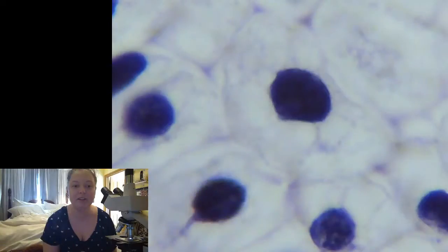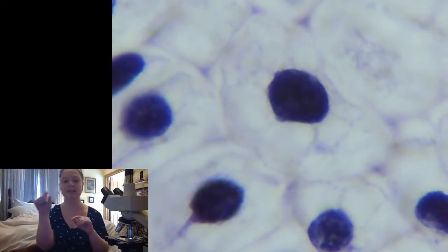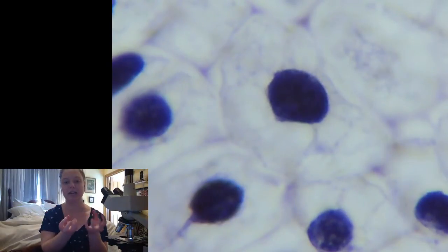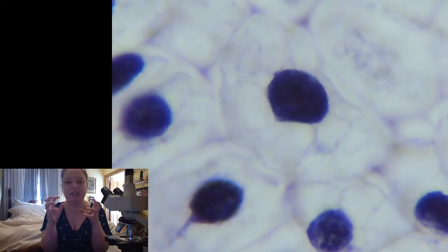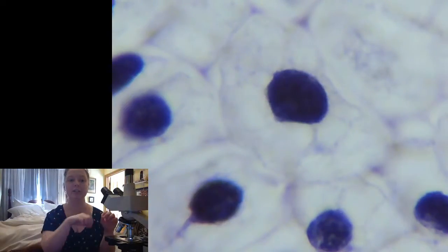Sophie, the test you do is you actually take some of the blood that you want to test and you mix it with the opposite types of blood and you see if it coagulates, if it clumps together, because the blood, basically you can think of it like it kind of freaks out. It doesn't like to be with the wrong type of blood. So if you mix it with the wrong types of blood, then it will clump together. So if you mix it with all the different types of blood, the ones that it doesn't do that with, that tells you, okay, this is the blood type.